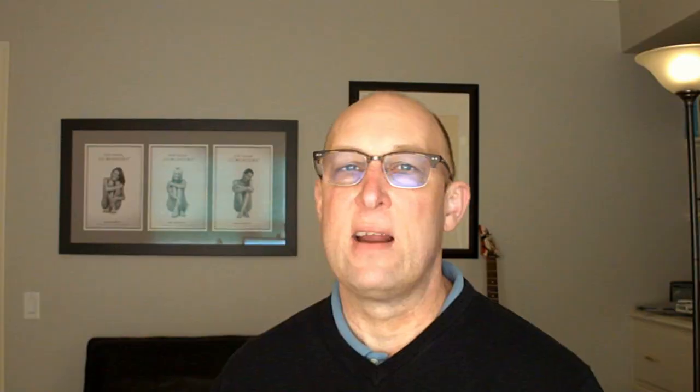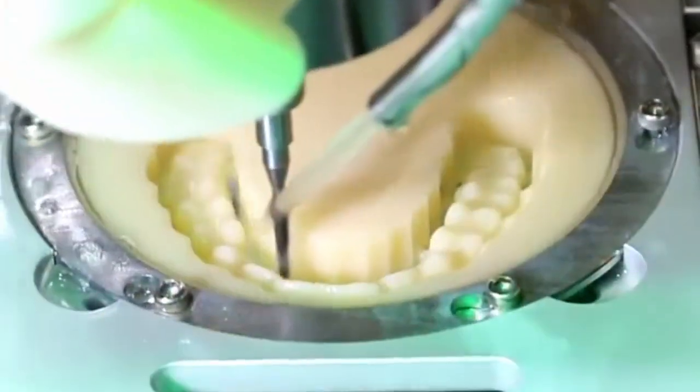The first section is about designing an all-on-X case very quickly. The second is to align a pre-op that you scanned in. If you don't have any tissue landmarks, you cannot align it to your jaw scan. In the last section, we're going to make a fast copy of your pre-op that you can then either mill or print, completely up to your workflow.